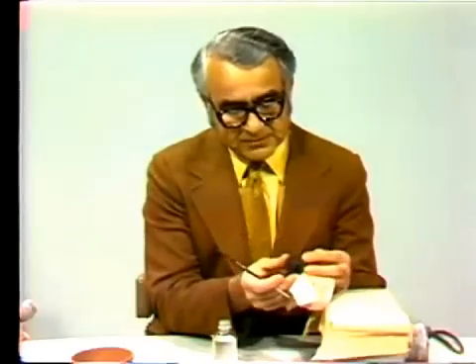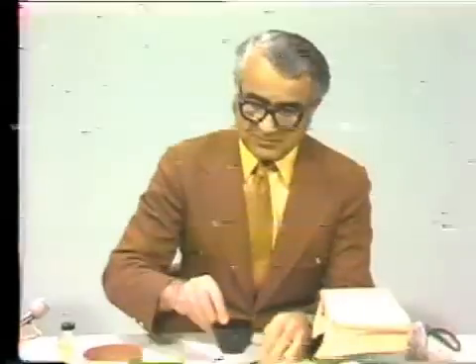I think this wax pattern is dried. I will put it aside for a little while until it is completely dried. In the meantime, I'll go ahead and mix my investment. One of the better ways of doing this is using a hand mechanical spatulator.